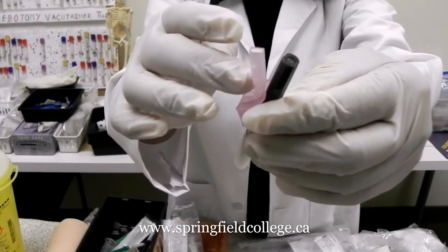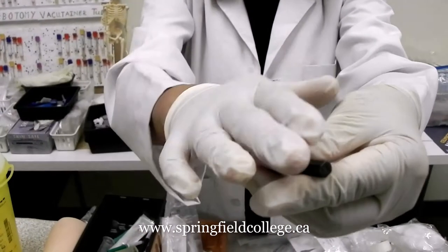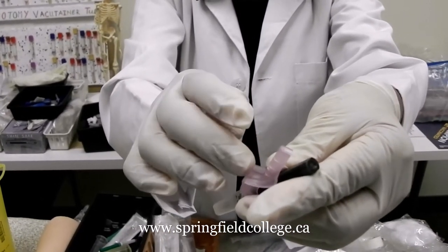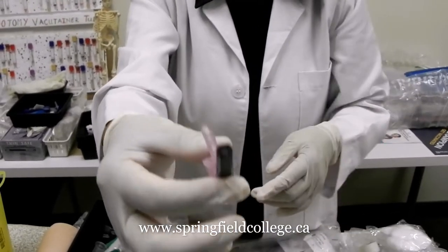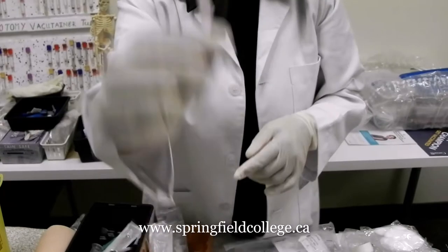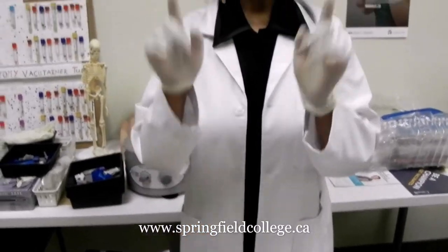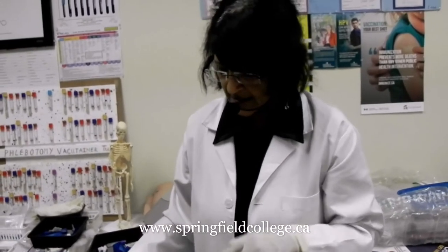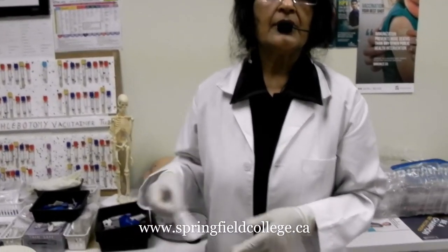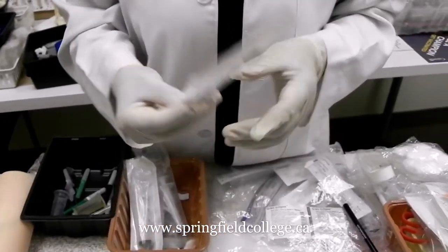The other purpose is that once we complete the process, we are going to flip it back and use it as a safety guard. So that is the needle with the safety feature. The second system, which may have to be used as an alternative, is the syringe.